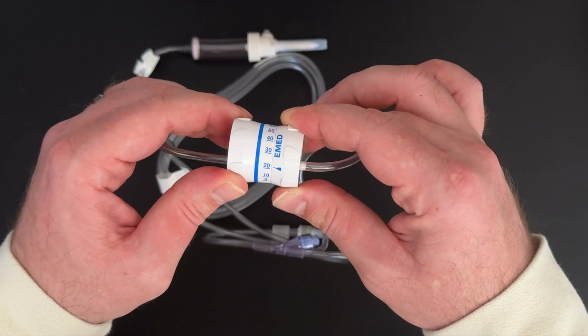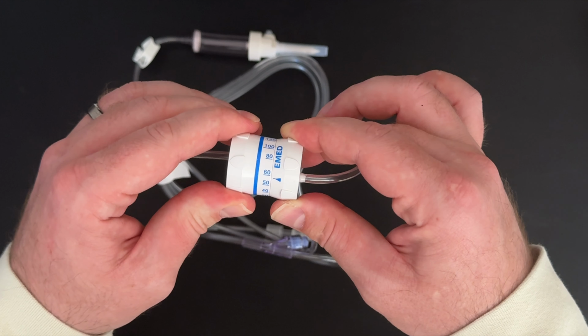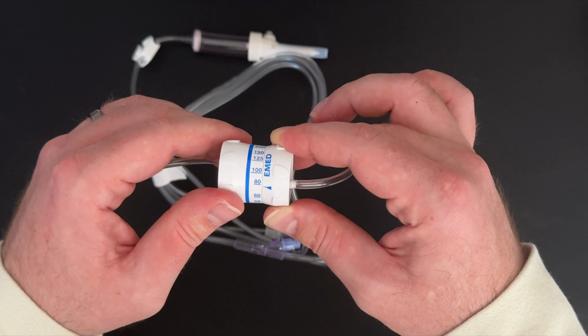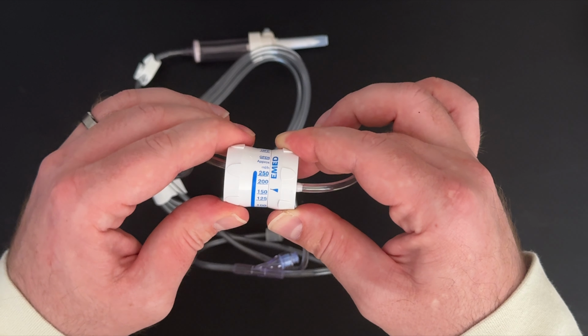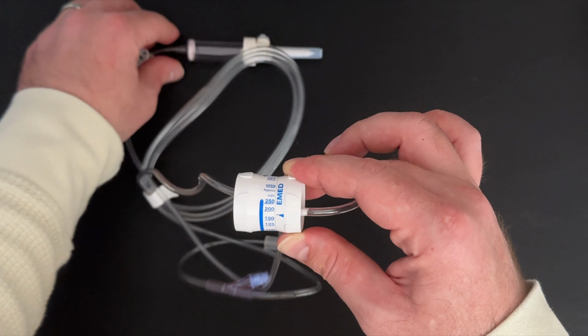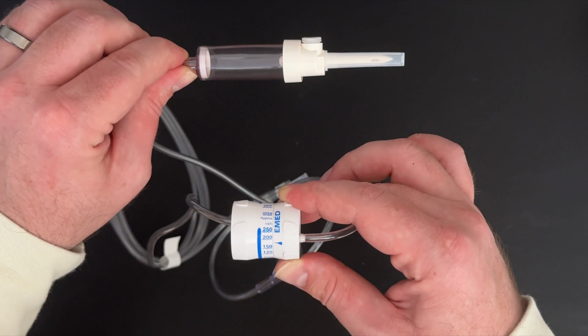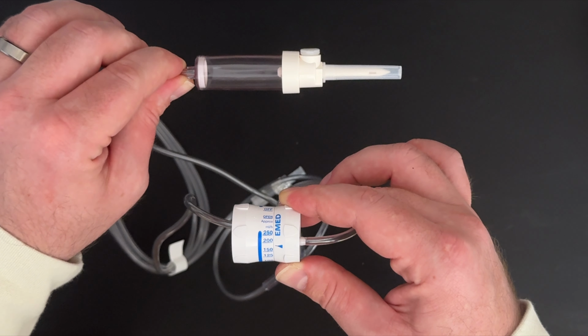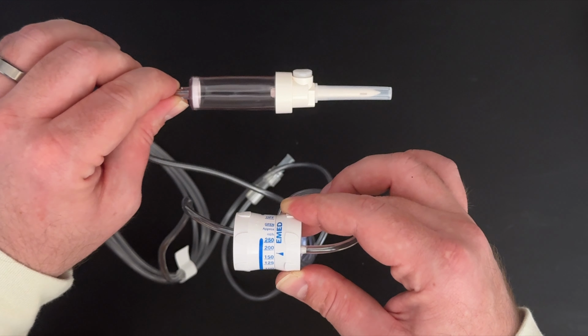As you turn the dial towards the open section, the numbers will increase, and that will increase the mLs per hour rate of flow. It is very important to note that with dial-a-flow tubing, the labeled flow rate on the regulator rarely correlates to the actual flow rate of the medication in the drip chamber. This is especially true with viscous medications such as IVIG.